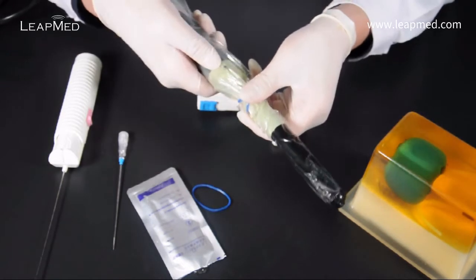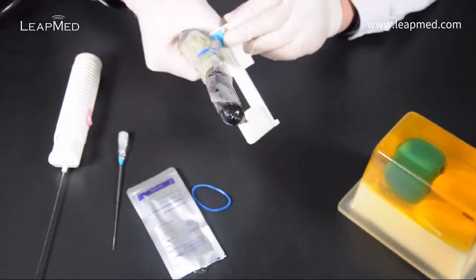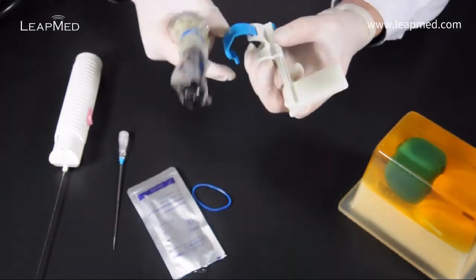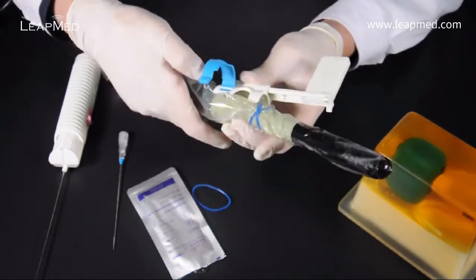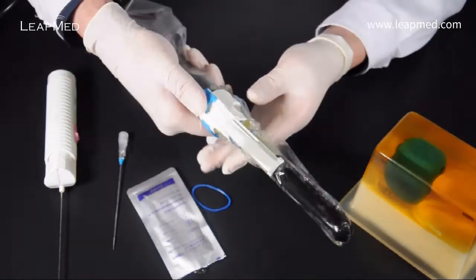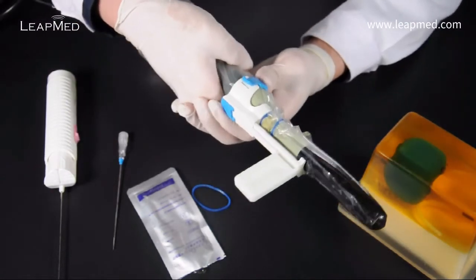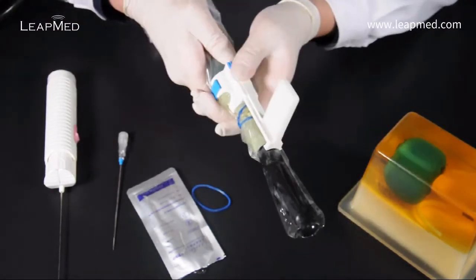We use the elastic bands to tie the cover to the probe and then we assemble the guide onto the probe. Pay attention to the fixing point and then assemble, match the guide according to the fixing point. Clamp the guide onto the probe.